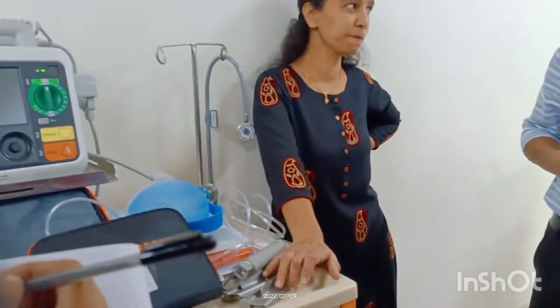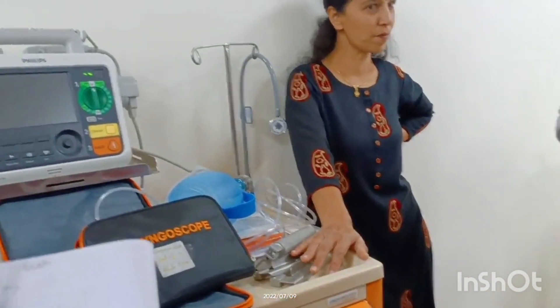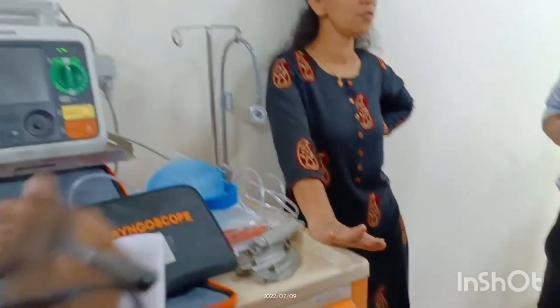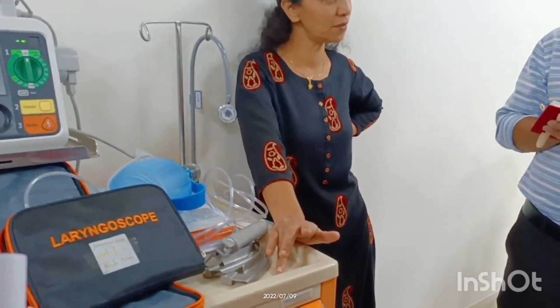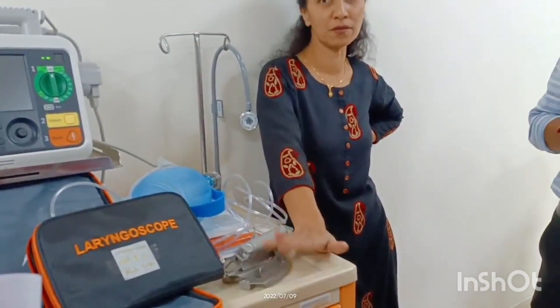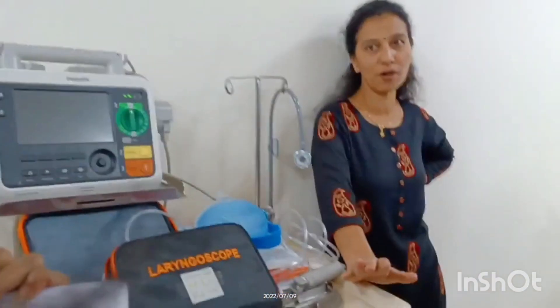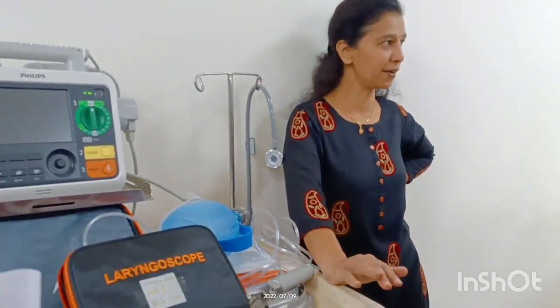The crash cart is used in severe head injuries, burns, and accidents. The main emergencies are when the patient is unresponsive, has severe breathing difficulty, or is in cardiorespiratory arrest. Not every emergency requires opening the crash cart — it is specifically for cardiorespiratory arrest situations.